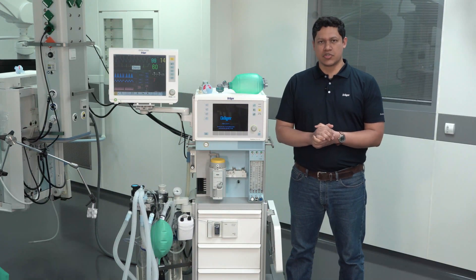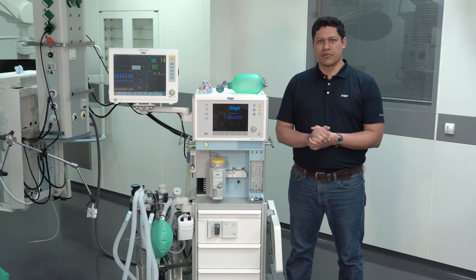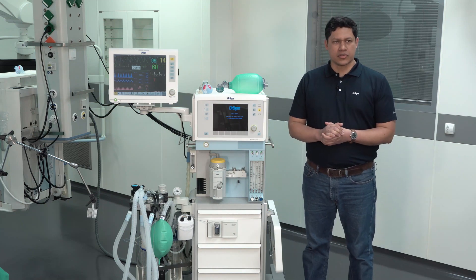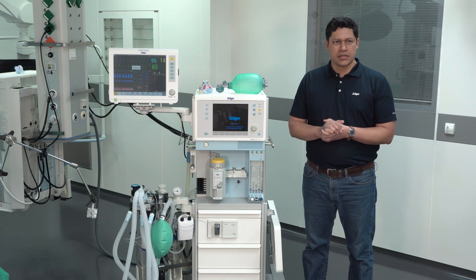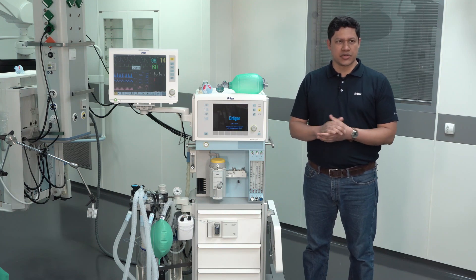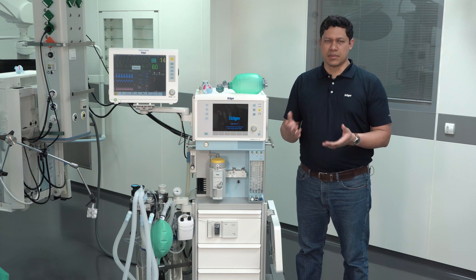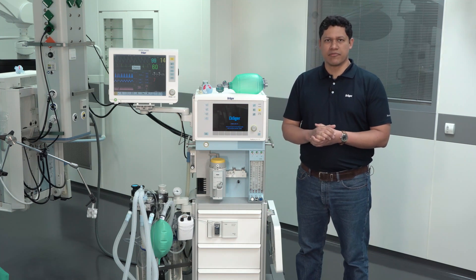The objective of this video is to provide medical personnel with the general recommendation for the use of an anesthesia device for long-term ventilation. Medical personnel using the device should be instructed on its use and familiarized with the Drager anesthesia device functionalities. An experienced anesthesia user, such as an anesthesiologist, should be available 24/7.